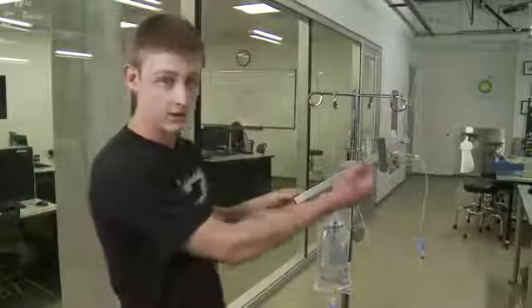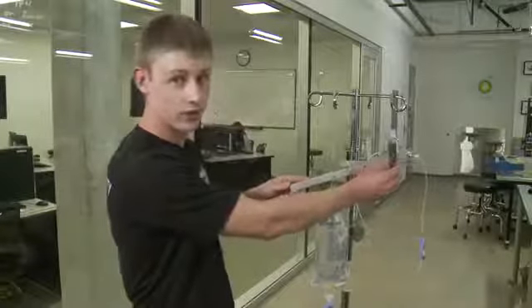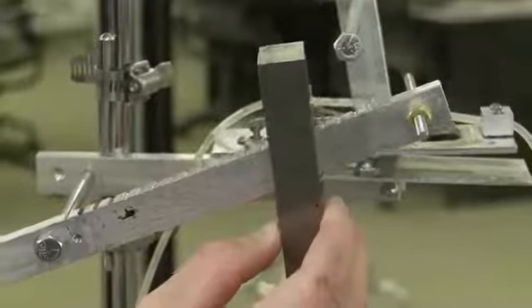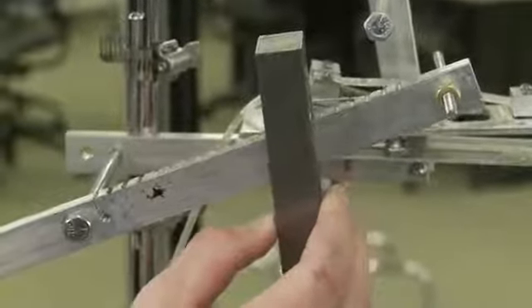Then they would set the scale. They do this by taking the counterweight and moving it outwards until they find the point at which the scale just barely balances. Then they move the counterweight 1 notch inwards for every 50 milliliters they'd like to dispense. So that was 3 notches, 150 milliliters.